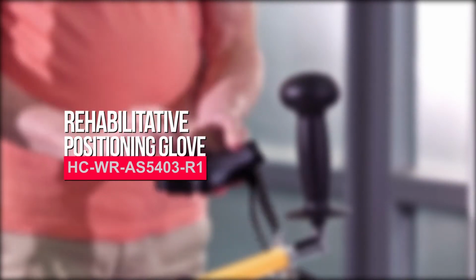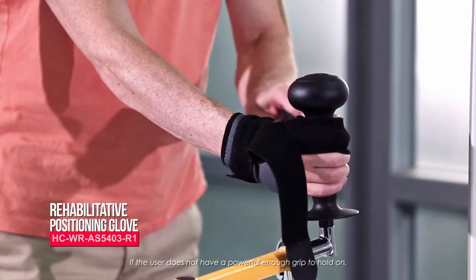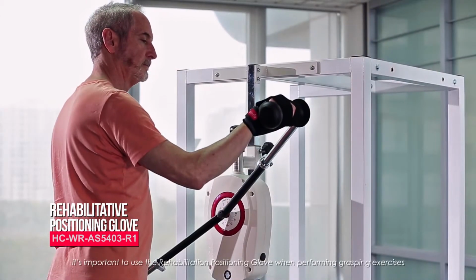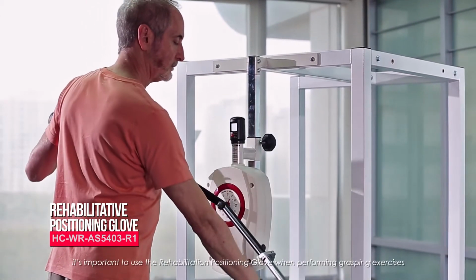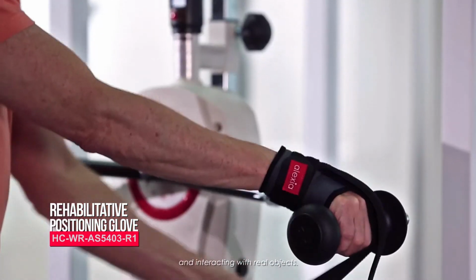Rehabilitative positioning glove. If the user does not have a powerful enough grip to hold on, it's important to use the rehabilitation positioning glove when performing grasping exercises and interacting with real objects.